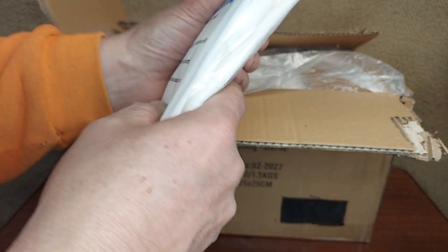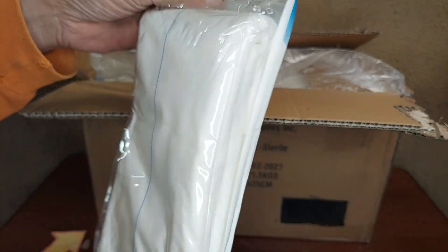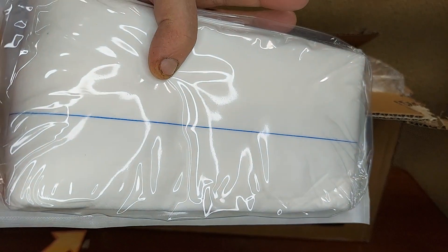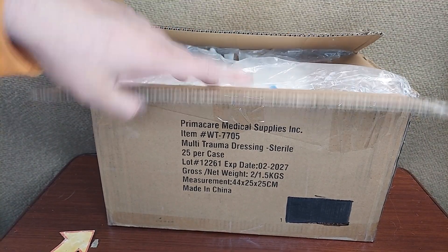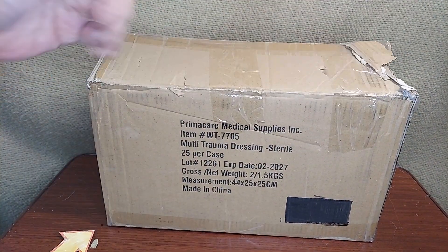These can be used to absorb and fill, or they can be used to create a great clean surface. As long as the packages are not damaged or open, they've got sterility. You can see how they're folded in there, and you get 25 of them, nicely packed. This way we can fill up multiple kits and still have a couple of extras.